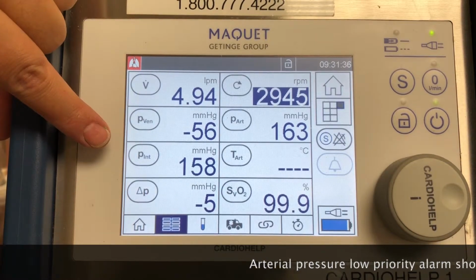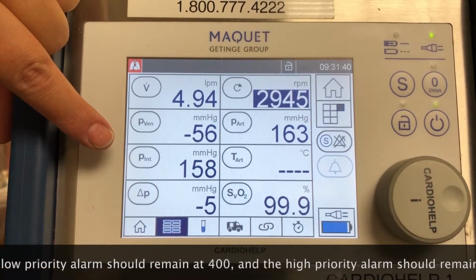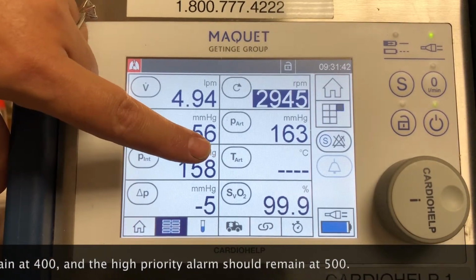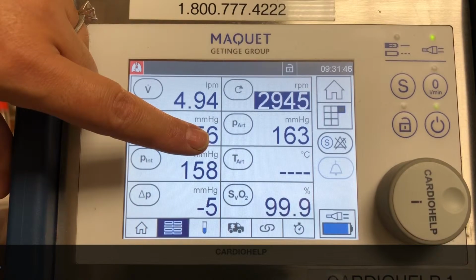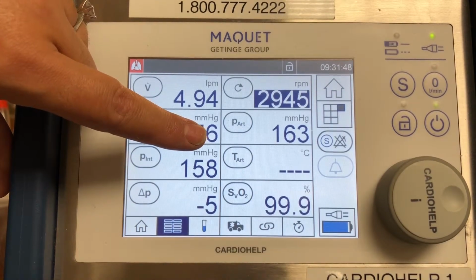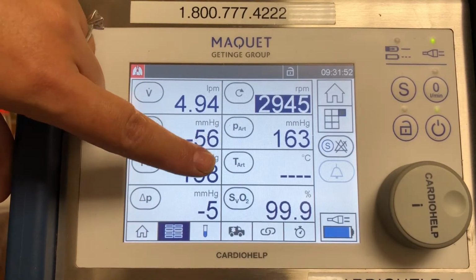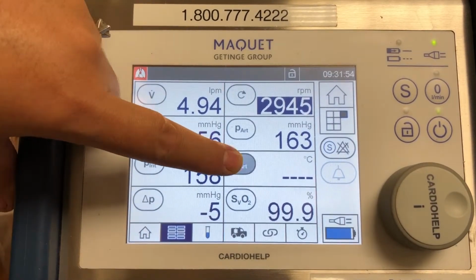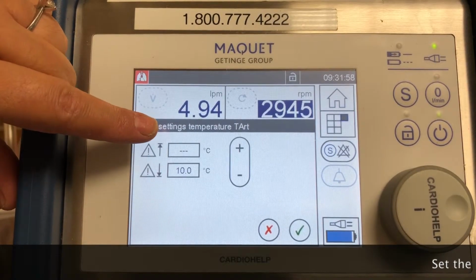Arterial is very similar to your inlet pressure, the same values, 400 for low priority, 500 for high priority. Your arterial temperature only has low priority. There are a few things on this machine that do not have high priority, because if they do change, it's not as significant and you're not going to kill the patient because it has gone out of range. One of those things is your arterial temperature, and that one has low values and high values.